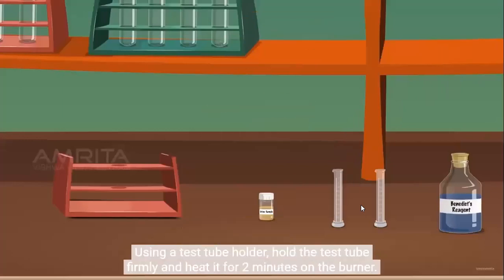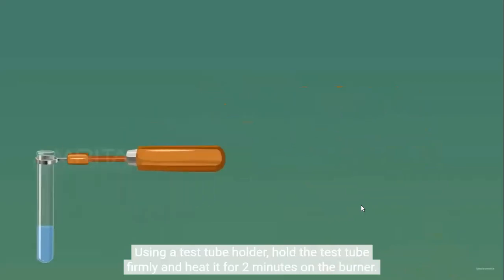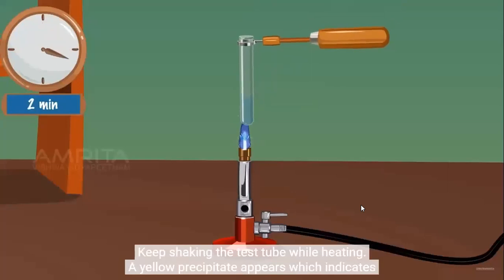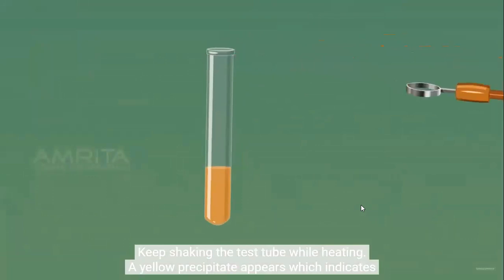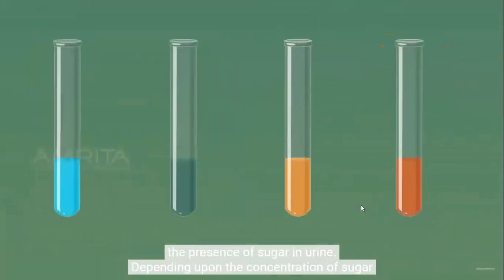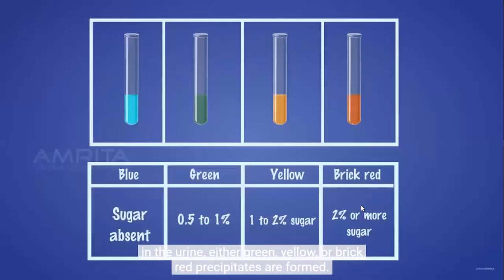Using a test tube holder, hold the test tube firmly and heat it for 2 minutes on the burner. Keep shaking the test tube while heating. A yellow precipitate appears, which indicates the presence of sugar in urine. Depending upon the concentration of sugar in the urine, either green, yellow, or brick red precipitates are formed.